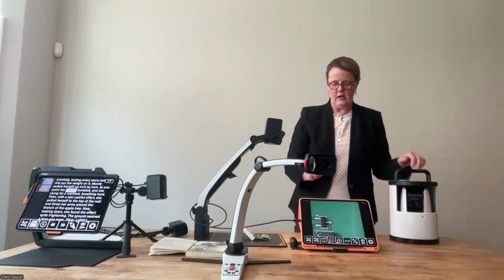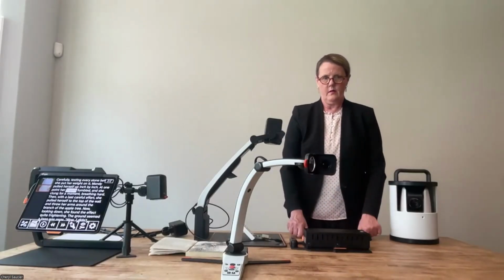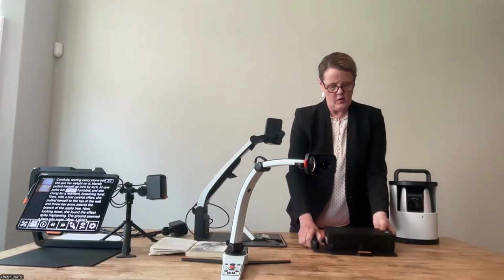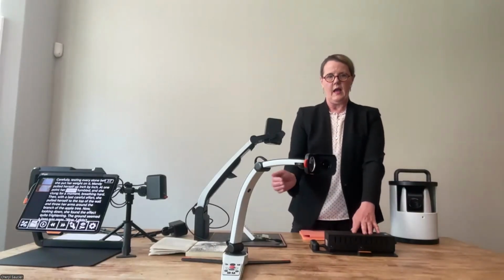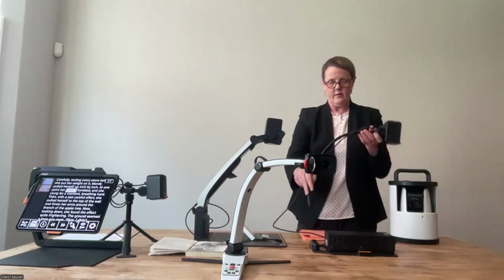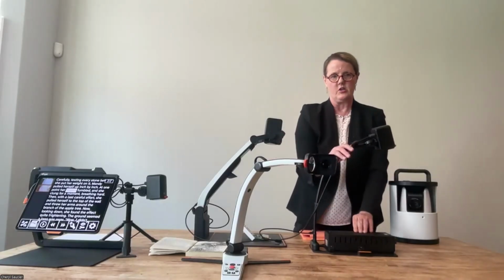The final one I want to talk about is our Magnilink Wi-Fi cam. This box here is our Wi-Fi cam product, and it is a closed router that you can use to wirelessly connect an iPad to this system and have one of our cameras connected here. Again, it can be either an external camera that can come with the Wi-Fi cam, or you can get a version that is just the router box and use one of our other cameras in conjunction with it.